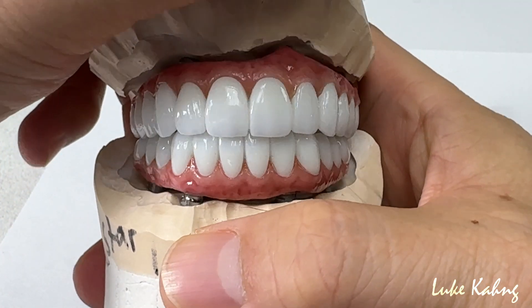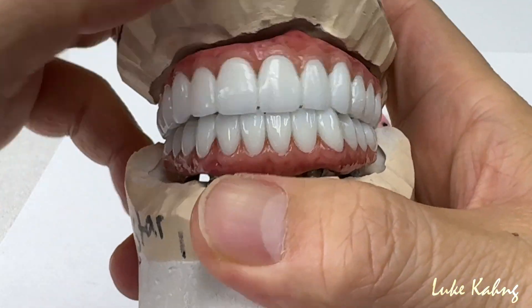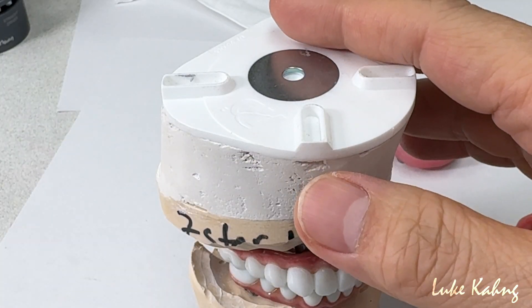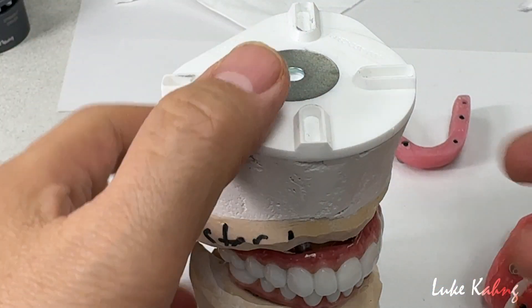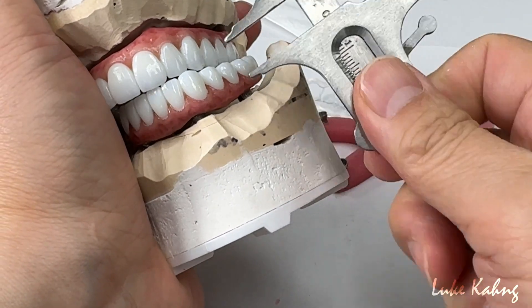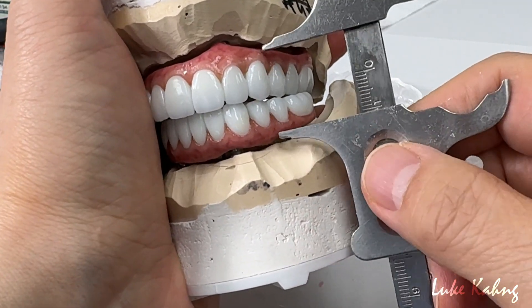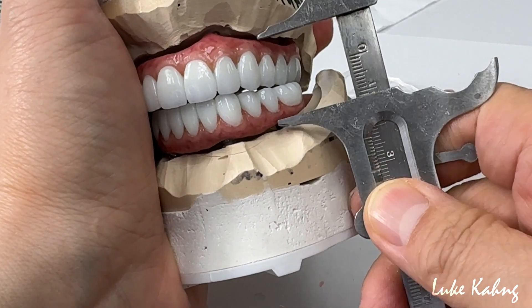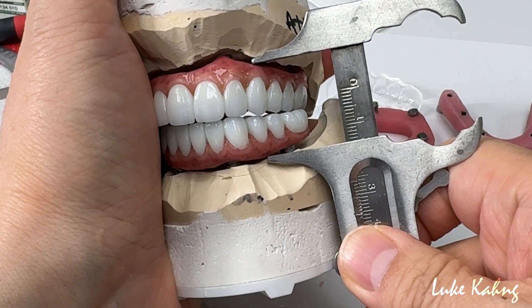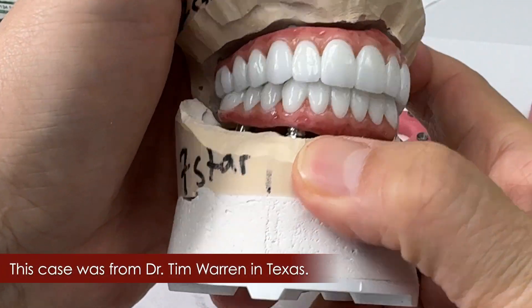Patients can get the white they want, with some translucency, and then they get a final result. Especially when we have an extremely tight vertical dimension — that's why I like to address it. Most of the time whenever I make a very tight vertical dimension, meaning tooth to tooth, very minimum — if I do zirconia restorations and it fails, it's a type A failure, easily, after six months or one year. This one is very limited. That's my experience.